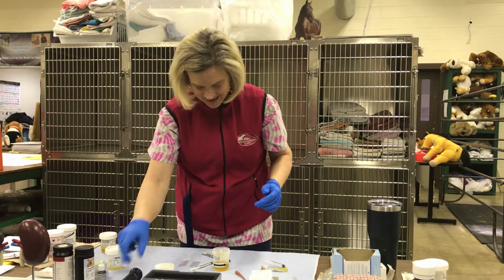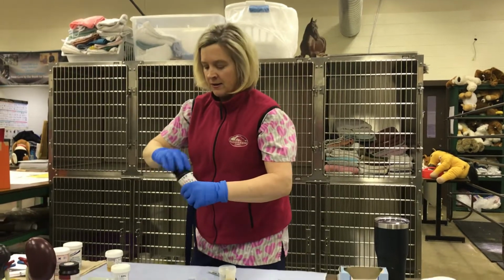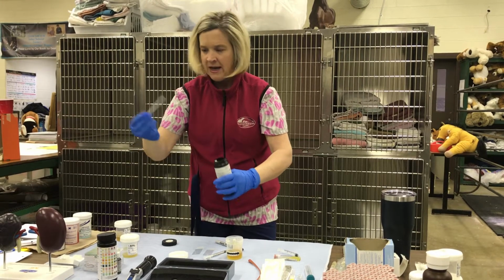Okay? Excellent. All right, the next thing you're going to use is your urine dipsticks. So that's going to be your next step. Let me grab one that's open. So your urine dipstick, you're going to take and pull that out.